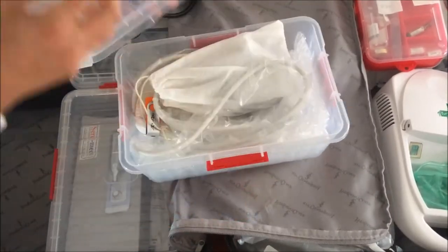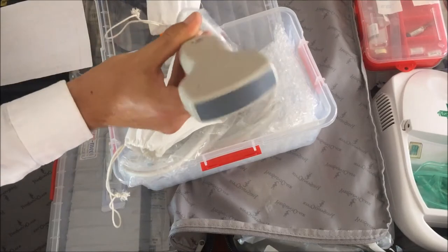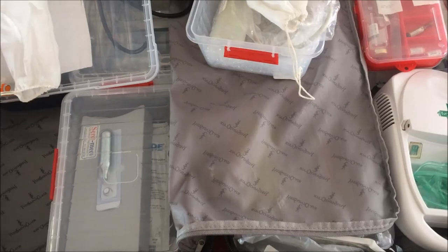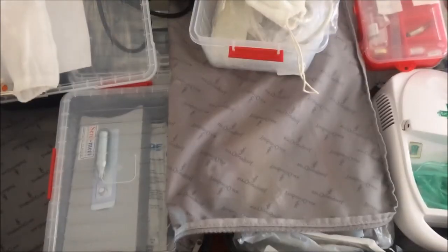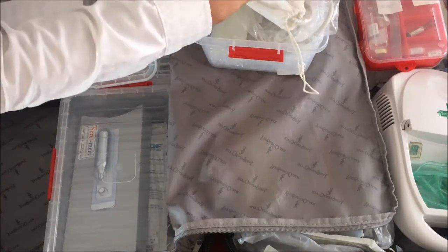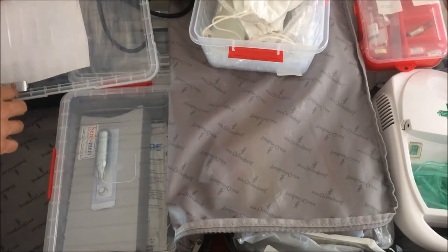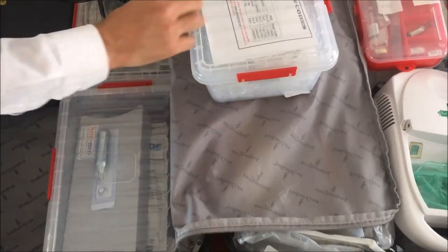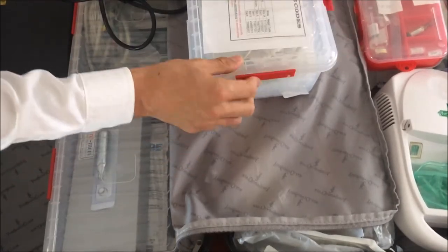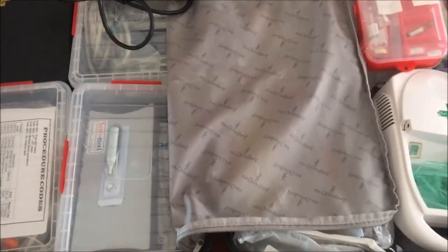Over here I have all the stuff I need for doing a sonar. This is a sonar probe, and I can do sonars by connecting it to my sonar machine, which I generally carry separately. This is my portable sonar machine — I basically connect this probe to it and can do a sonar for a patient at their bedside. It's not a great sonar machine; the resolution is very low and it does only very basic investigations. But for someone who cannot leave the house — say it's an 85-year-old patient with severe arthritis — and you just want a rough idea of what's going on in, say, the liver or kidneys, then this sonar does help. So it won't do a full heart sonar or full abdominal sonar, but I can get basic information that helps in cases where a patient cannot go to a hospital for an x-ray or sonar.